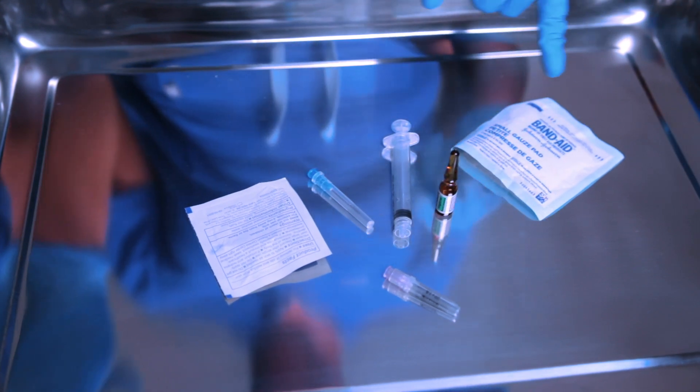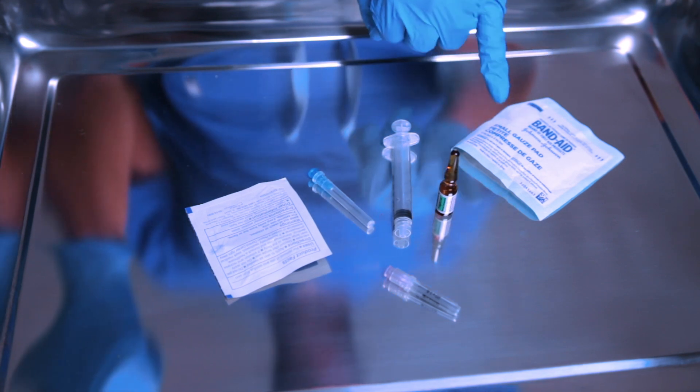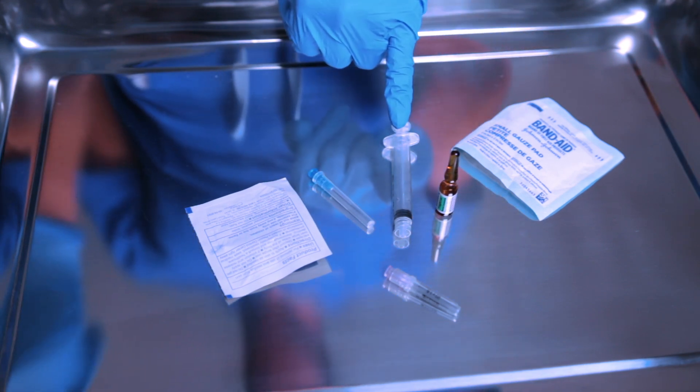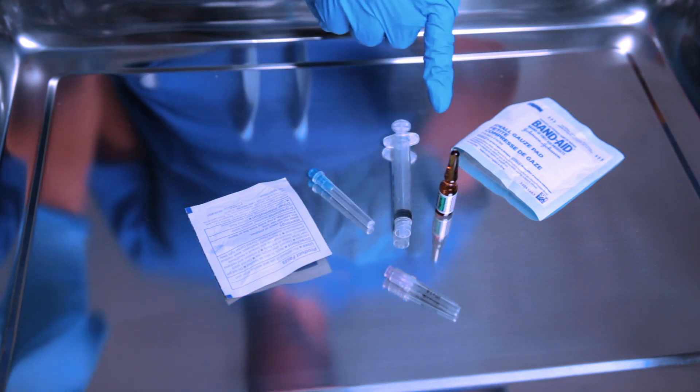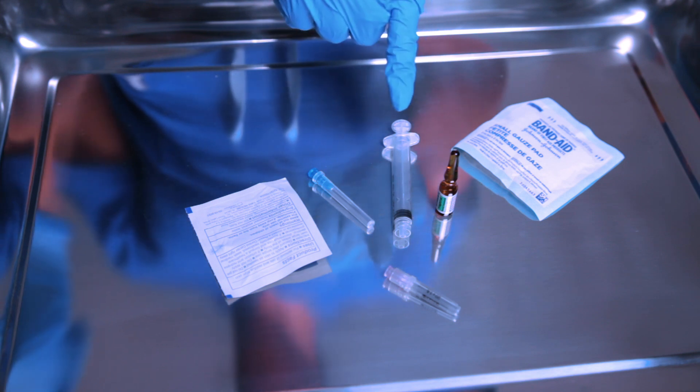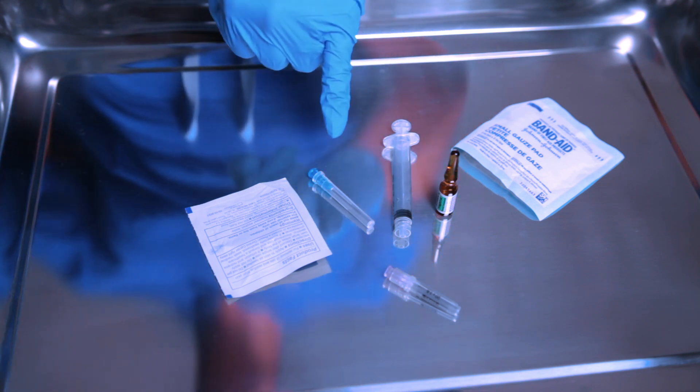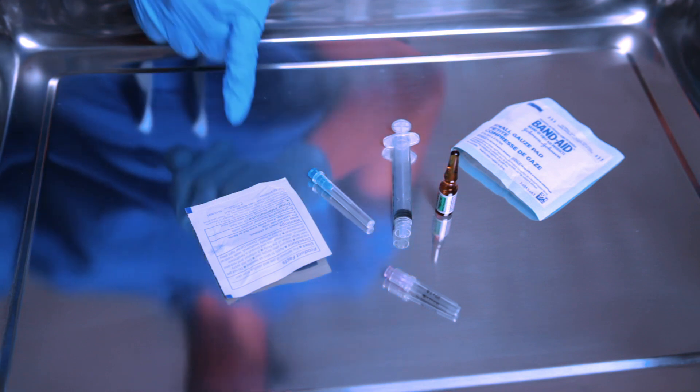You also have your gauze, you have your three mil syringe, you have your filter needle because this is a glass ampule and it requires a filter needle. And then once you're done with that, you're going to switch out your needle cap and administer it subcutaneously. And you also have your alcohol prep.